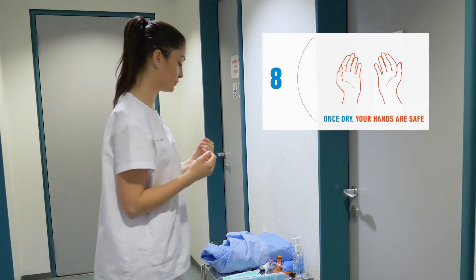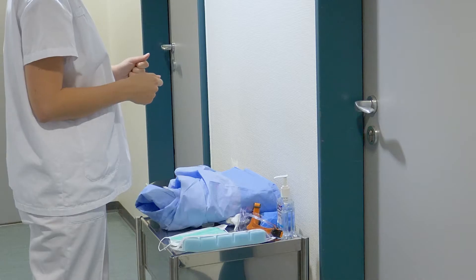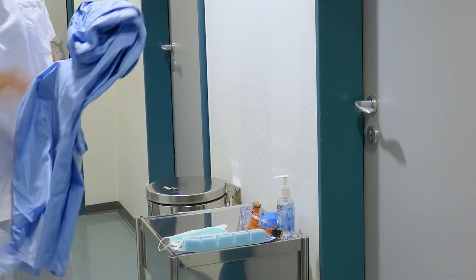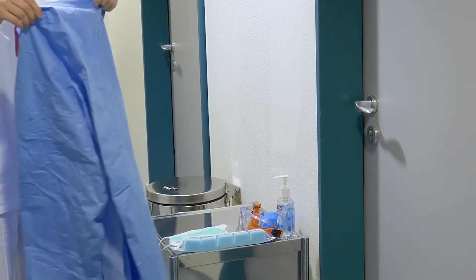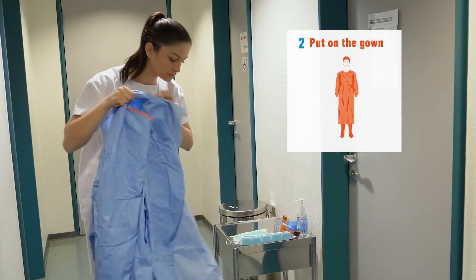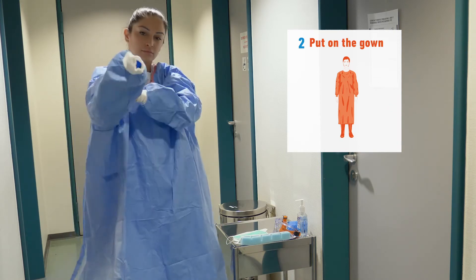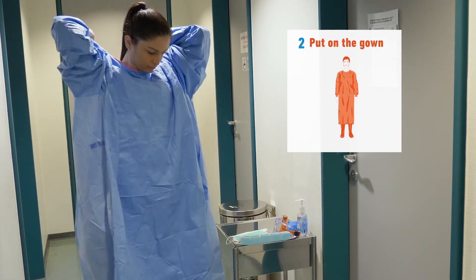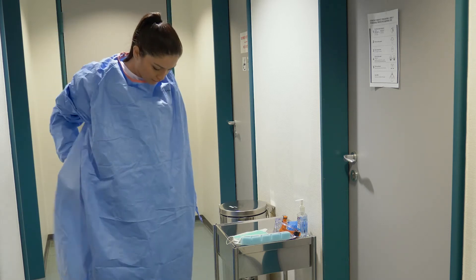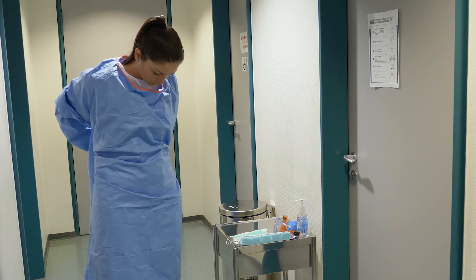Congratulations, now your hands are clean and safe to proceed with the PPE. Now that you are ready to put on the equipment, check the integrity of the equipment and do not use any damaged equipment. You are now ready to put on the gown. Tie back long hair if applicable and inspect the equipment for damage prior to putting on each piece. Put on your gown, tie it around the neck and waist and secure it around the back. Ensure all clothing is covered by the gown.